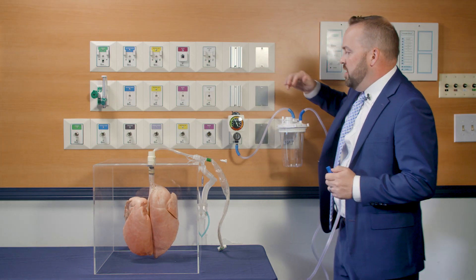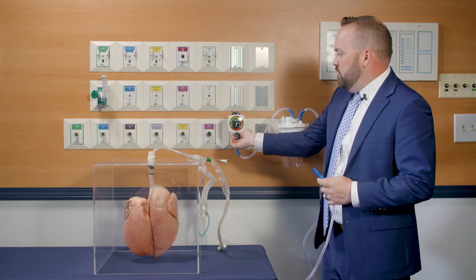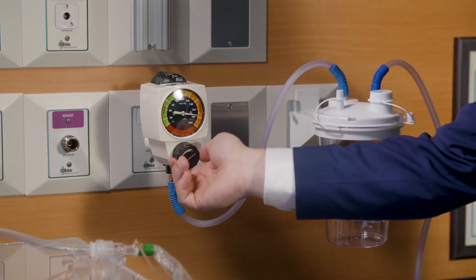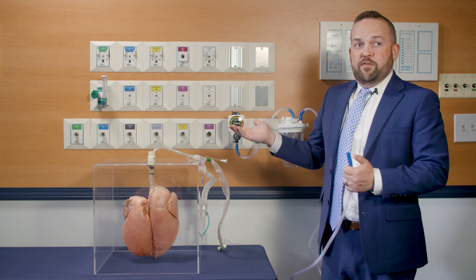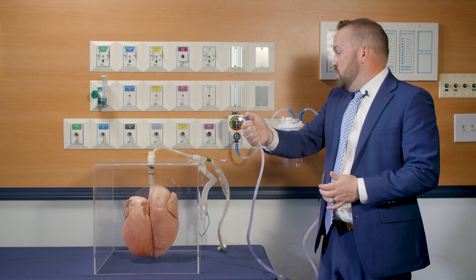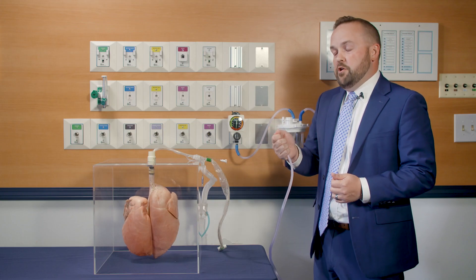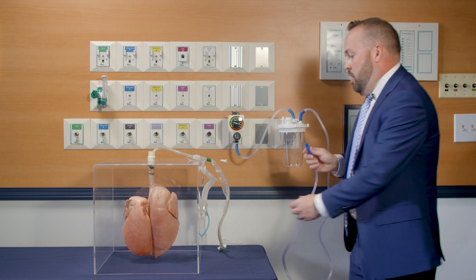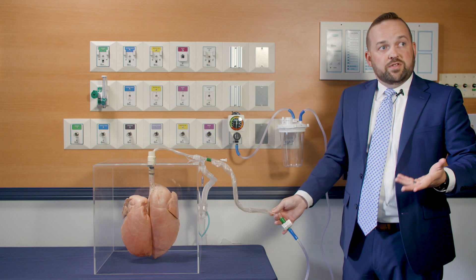Let's take a look at the pig lung to demonstrate this. When you power the regulator on, the major problem is that if you have your tubing open to the atmosphere, as you increase the suction pressure knob you'll see the pressure going up, but at a certain point it stops increasing. Even if you turn the vacuum regulator knob further, it doesn't go up any further. But as soon as you occlude the end of the tubing, you can see that it goes up to full wall vacuum pressure — as much as 600 plus millimeters of mercury. So now I'm going to demonstrate what happens to the lung while it's being ventilated through a suction catheter.